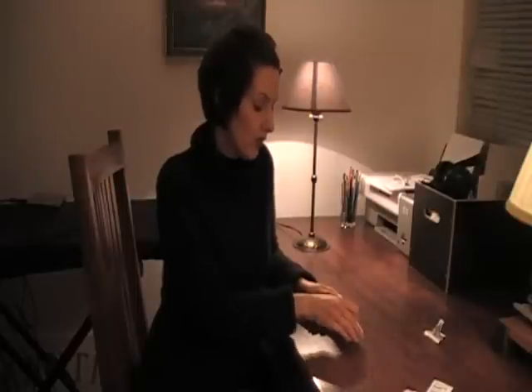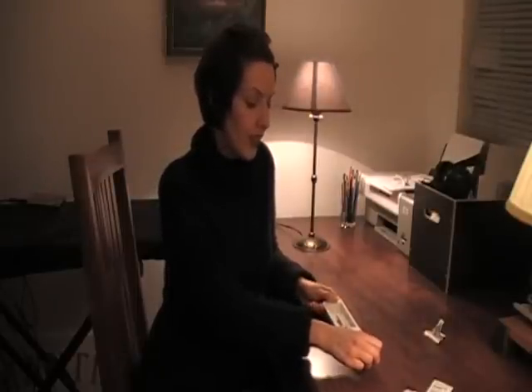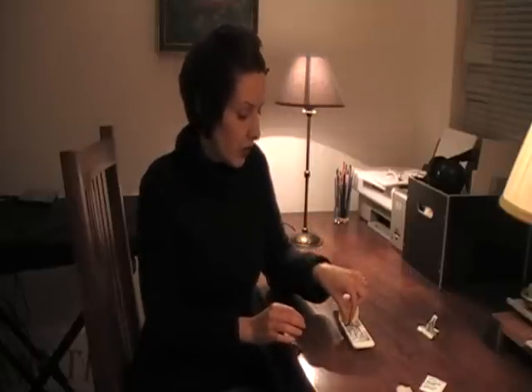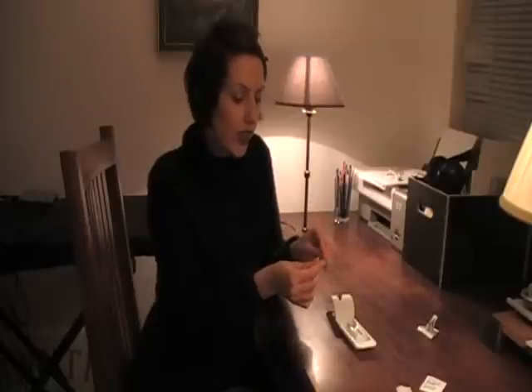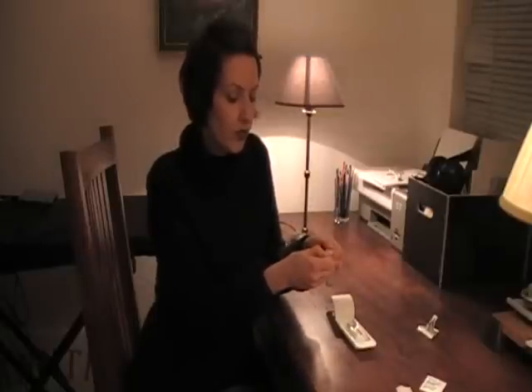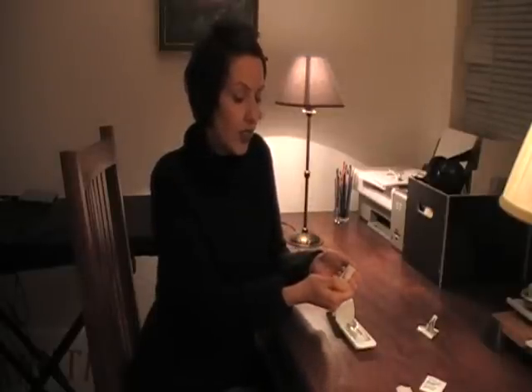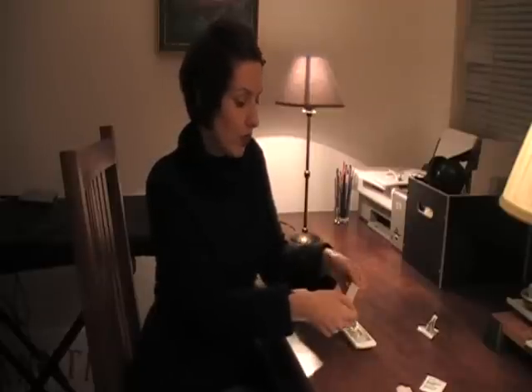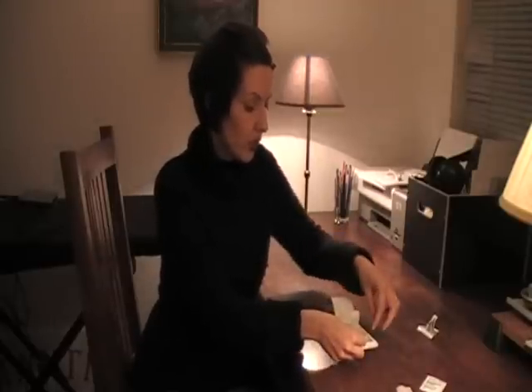So you open your pack. Now inside, everything is sterile — or 'sterile' as we say in the UK. What I suggest you do first is to take your needle, which is completely sterile as well, and just get that ready. When you open it, leave it like this. Never touch the blue part with your fingers — very important. Just leave that in your tray without touching it.